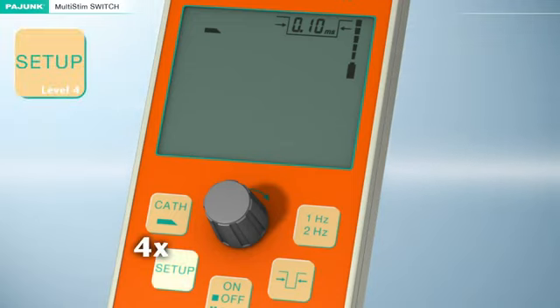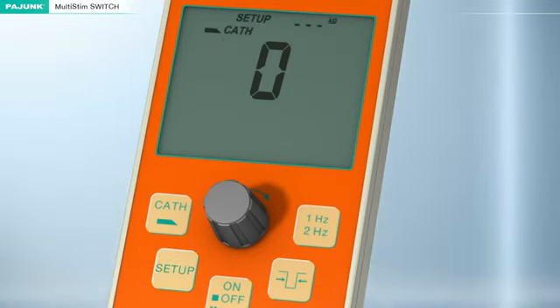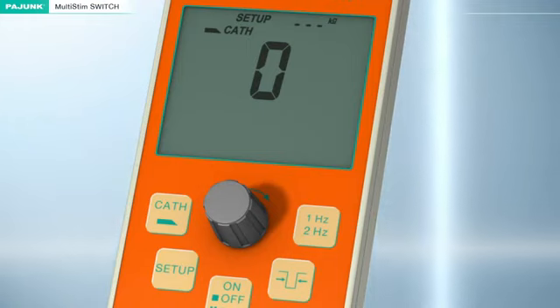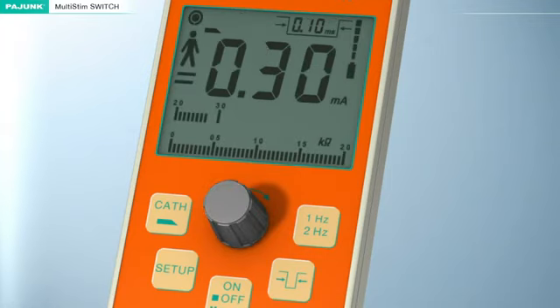Setup Level 4. The threshold value at which the acoustic signal for the patient resistance will change can be adjusted in Setup Level 4. This setting applies for both the cannula and the catheter. Below the threshold value, single sound pulses will be emitted for every stimulation impulse. Beyond the adjusted threshold, a double sound pulse will be emitted for every patient stimulation impulse. Exceeding the predefined threshold value will also be indicated acoustically as well as visually via the analog bar graph indicator if this function has been activated.